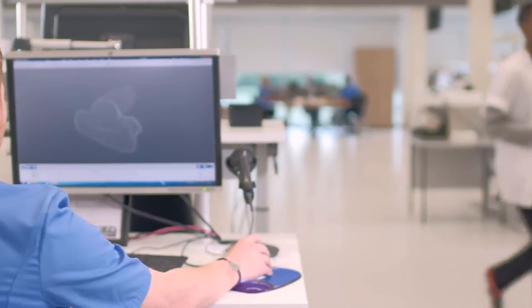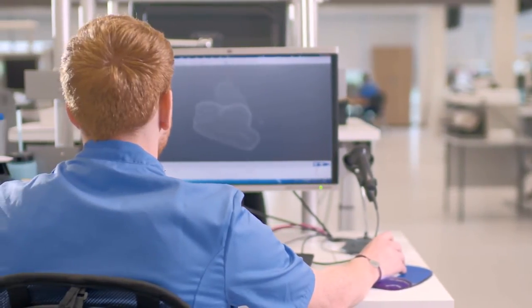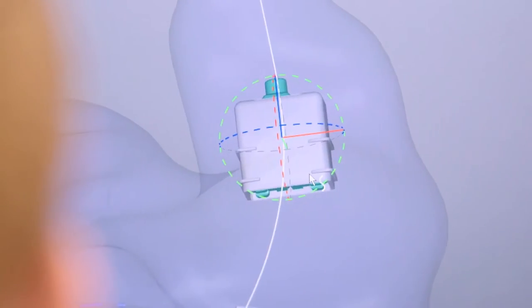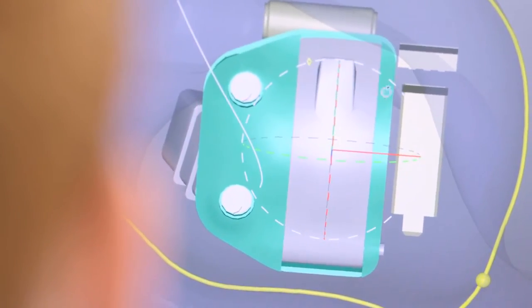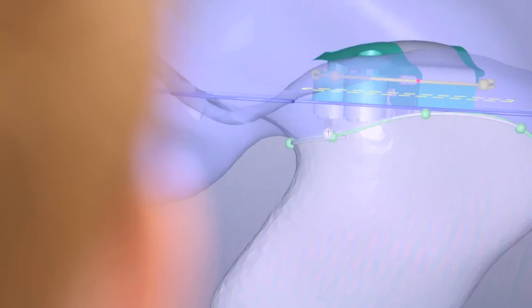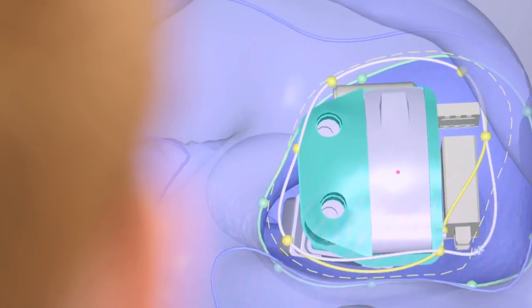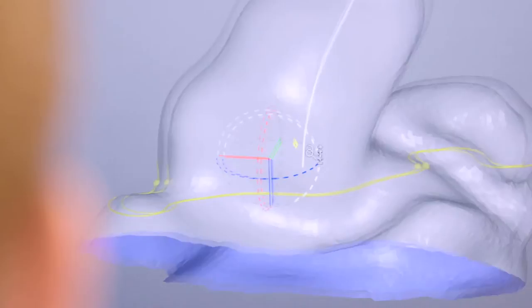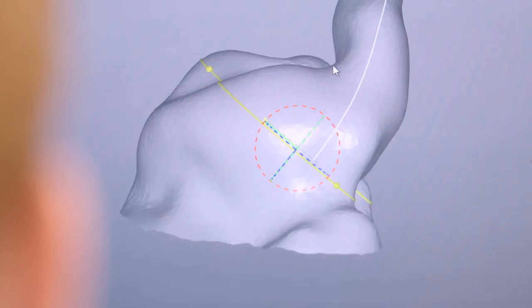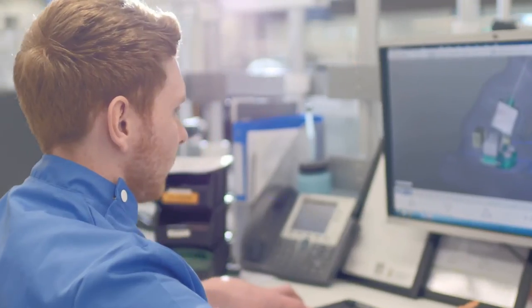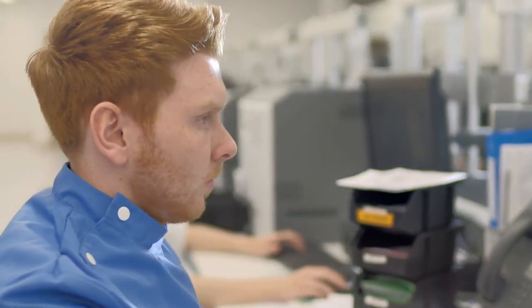I'm Scott, my role is RSM Team Leader. RSM is the software we use to design our ITEs, which is rapid shell modelling. We're represented with the 3D impression and we've then got to place the components in the optimum position for both performance and cosmetics. I think Phonak ITEs are amazing because you're getting the best possible technology packed inside the most personal cosmetic shell possible. We're constantly striving to be innovative. Every single impression we get, every single order that comes through is a chance for us to change someone's life.